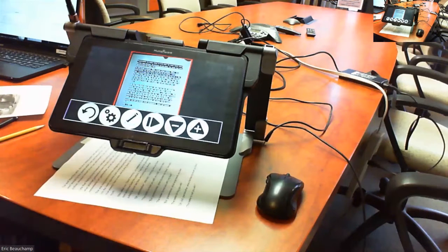Well, the OCR is software. Sometimes if it's not in a particular perfect environment, the OCR will not detect the correct word. But in the English language, I would say it will detect the right word about 99% of the time. But it does sometimes detect the wrong word, and you do have some errors. So what we've done on the Mag Connect is that we have a first pass, a fast OCR, where you'll have some errors, and then a more accurate OCR that's going to pass on the page and give a more accurate result. But still, you can still have some errors.